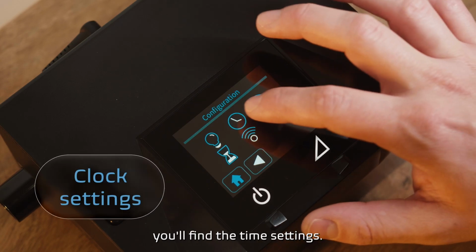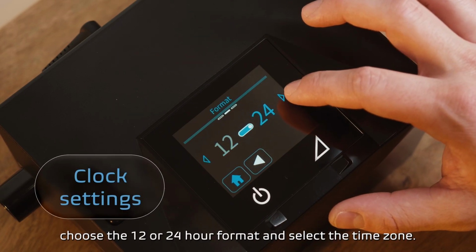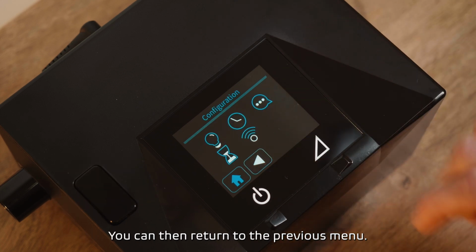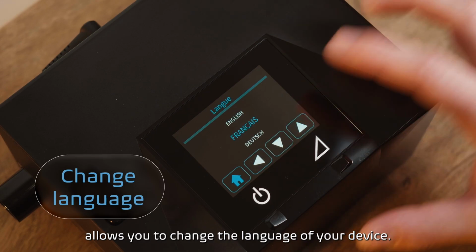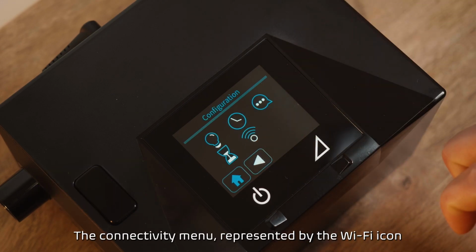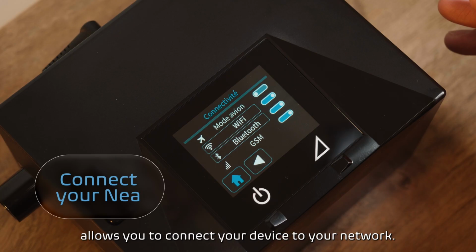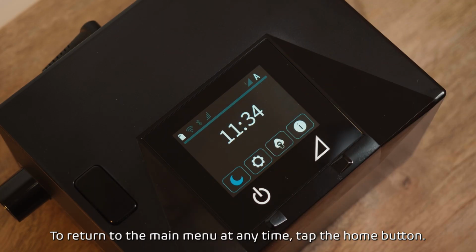Next to the light bulb, you'll find the time settings. Here, you can set the time, choose the 12 or 24-hour format, and select the time zone. You can then return to the previous menu. The speech bubble icon allows you to change the language of your device. The connectivity menu, represented by the Wi-Fi icon, allows you to connect your device to your network. To return to the main menu at any time, tap the home button.